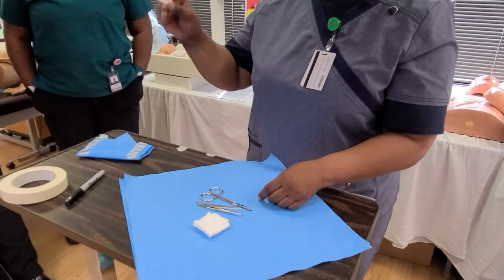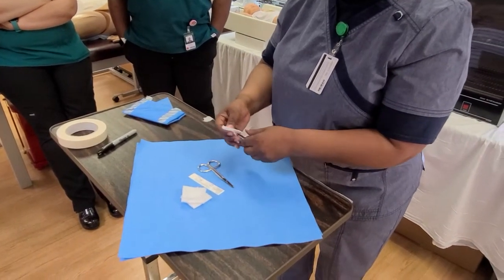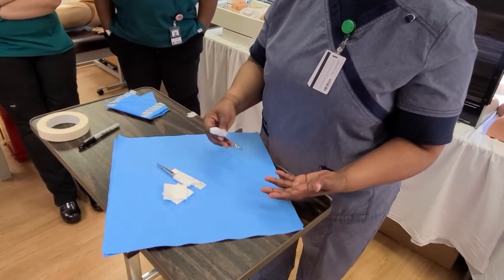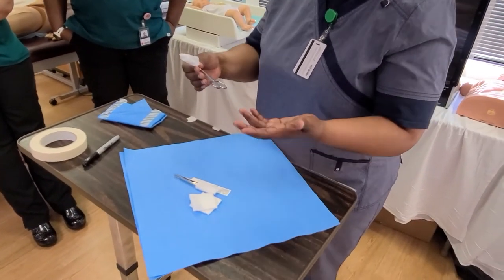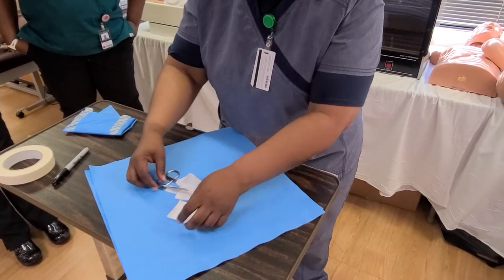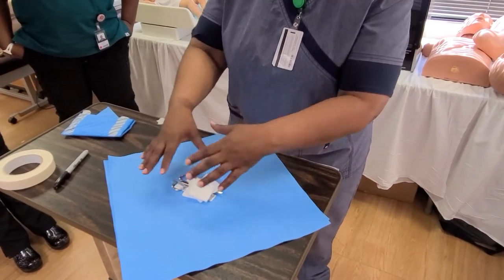The first thing I need to do is make sure that my sterilization indicator is on the innermost layer, and I need to also protect my instruments. There are lots of different ways — there's no specific way you need to wrap. It really doesn't matter because it depends on what you're putting in here, whether it's a suture removal kit, soft tissue kit, bone kit, or something like that — it's going to require a little bit more.